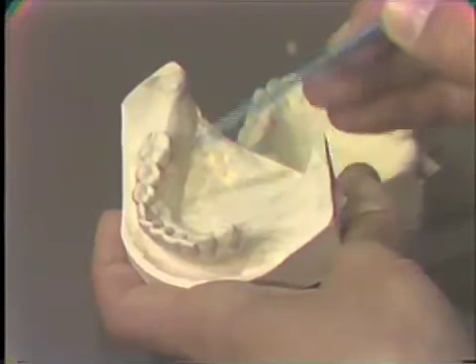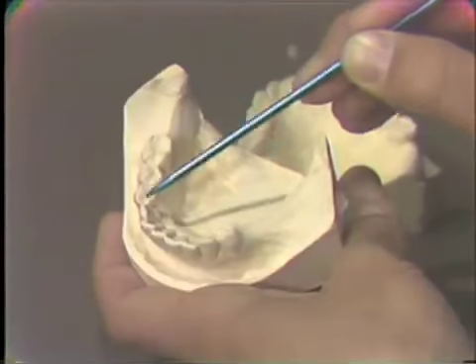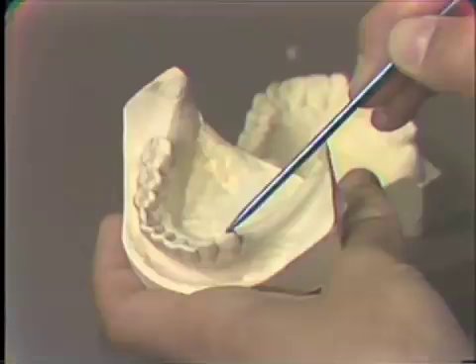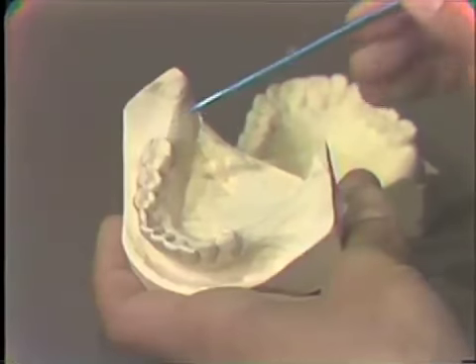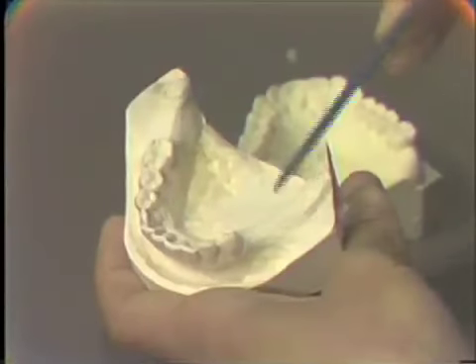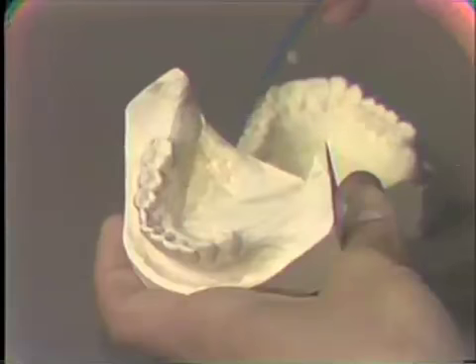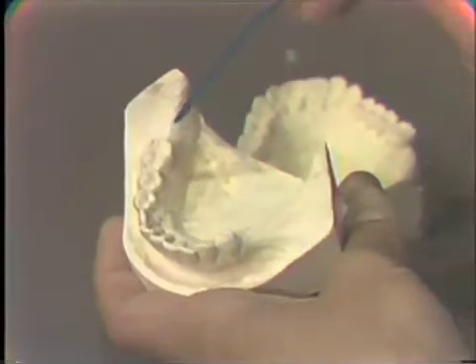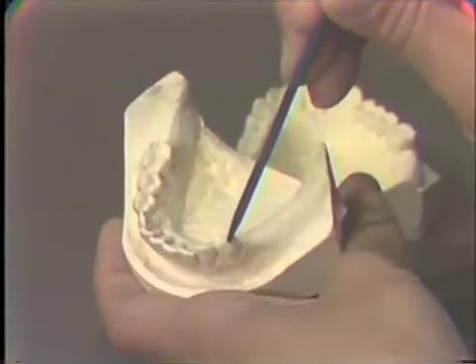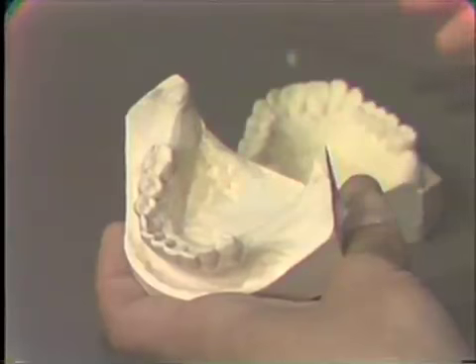So the larger the base area of the opposing dentition, the larger the base area of those occlusal contacts, the more stable the occlusion would be. If there were a molar in this position, then we would have no problem at all, because that base area would be rather large. But you can see as we lose the teeth, this base area becomes smaller, and the more the tendency for rocking.